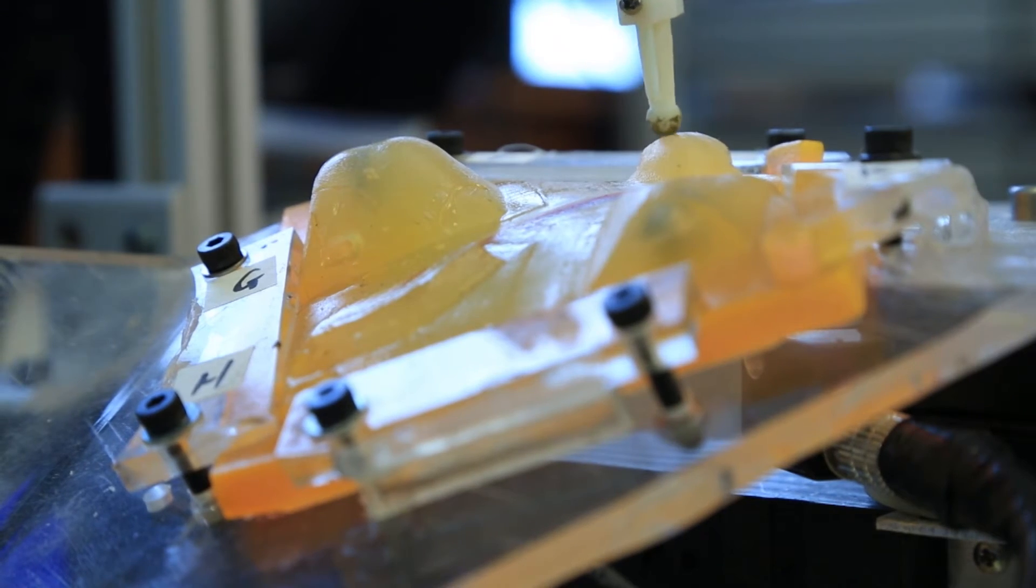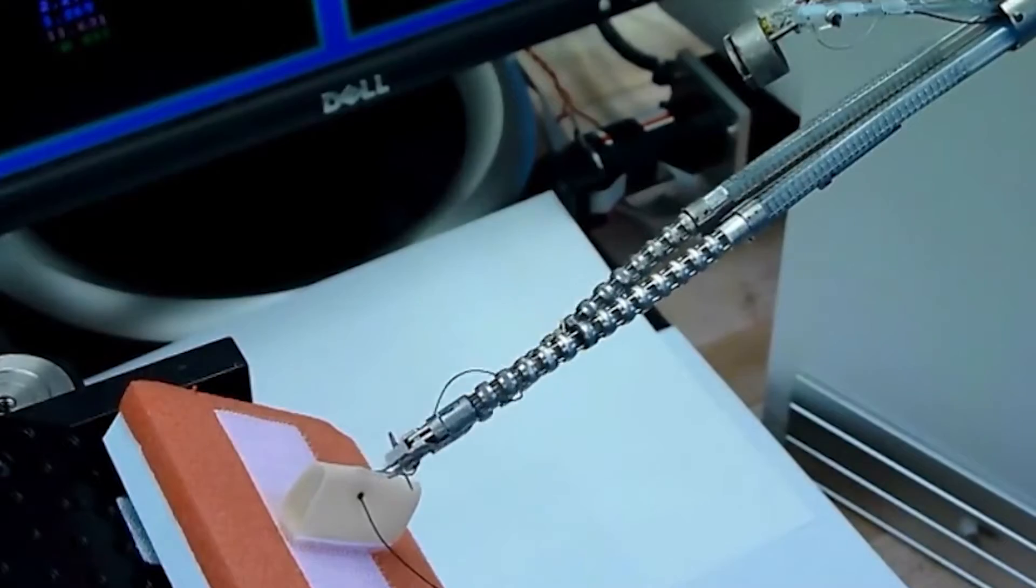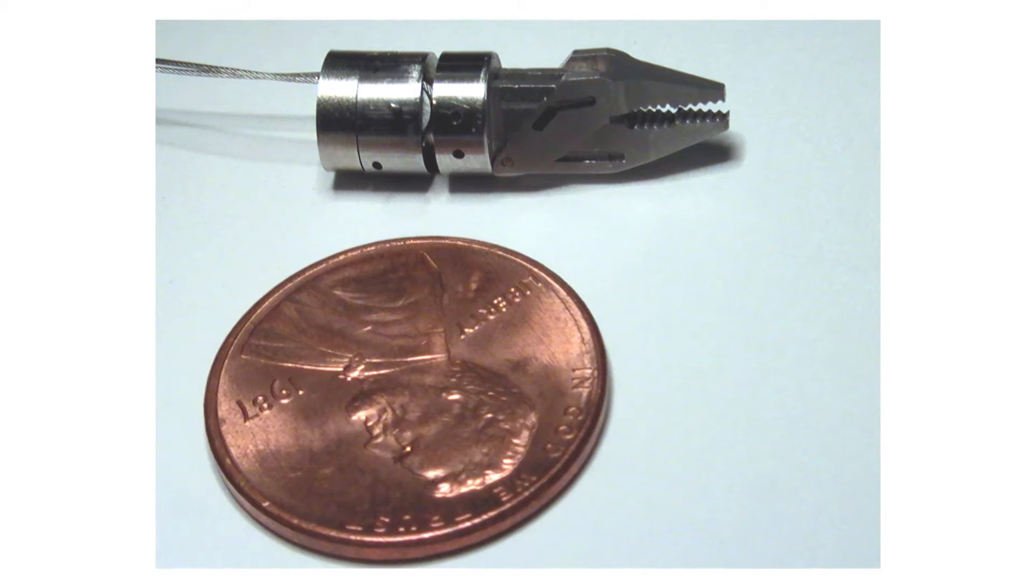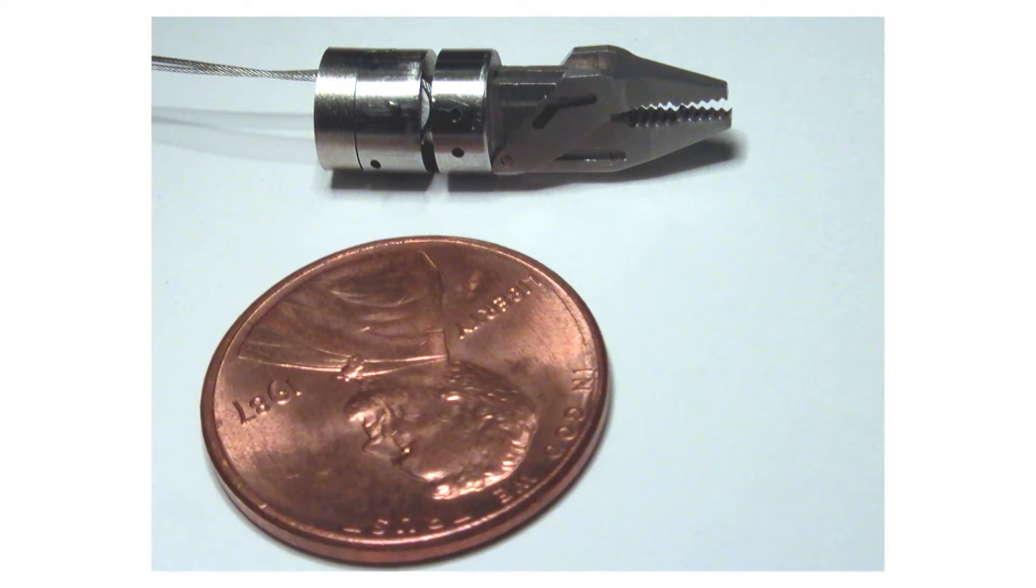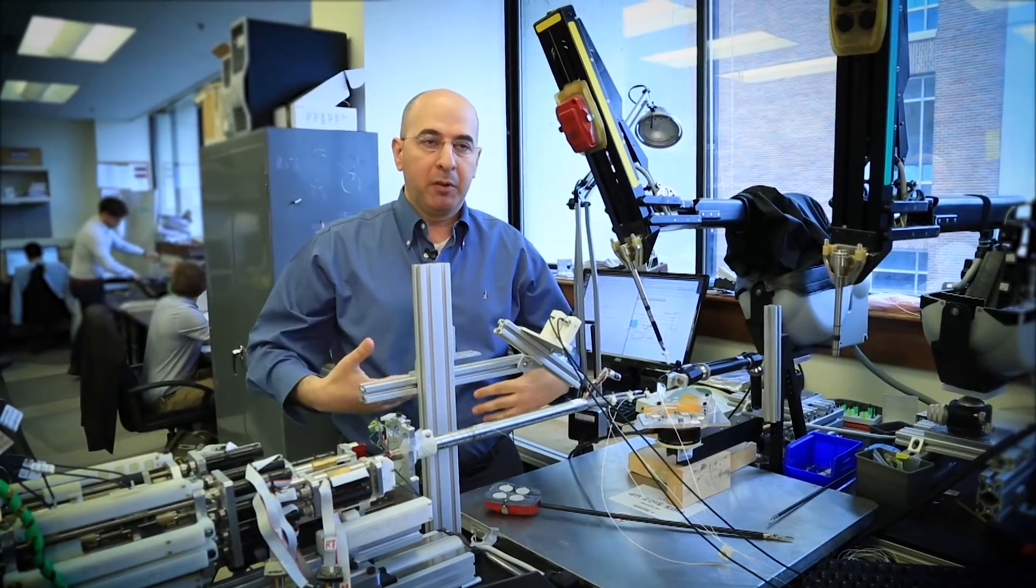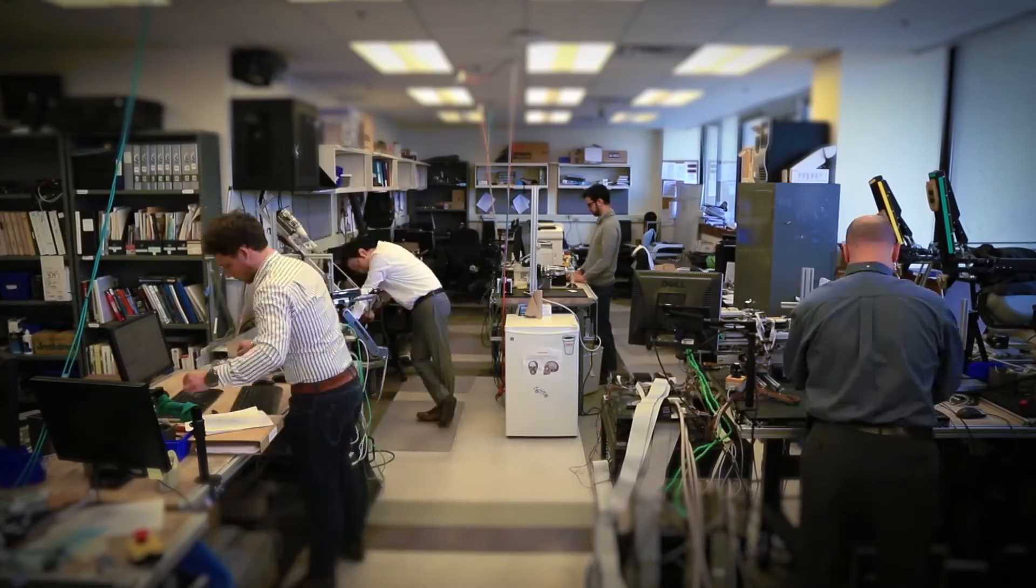Helping make good surgeons great. The surgeon is still controlling that level, but they don't have to worry about actively controlling it at every fraction of a second. And making surgery even less invasive. When we do that, we basically reduce recovery time, we reduce the number of incisions. Saman and other Vanderbilt researchers are experimenting on multiple procedures.